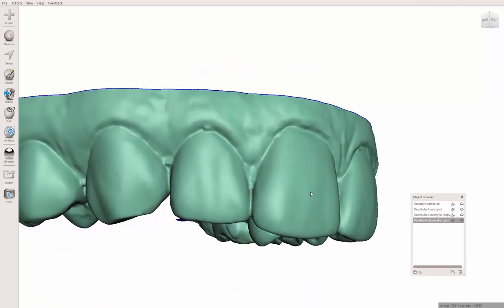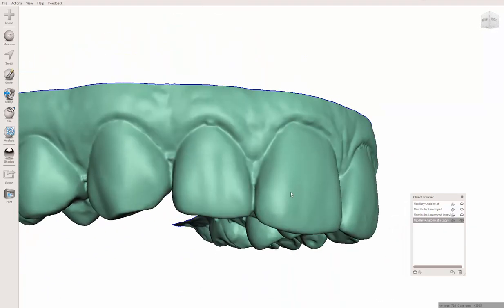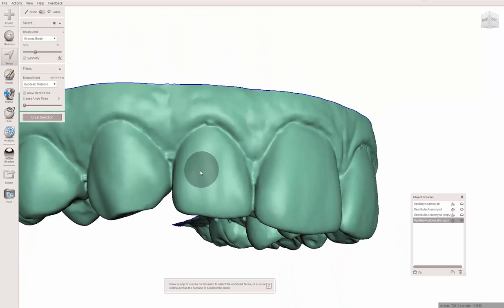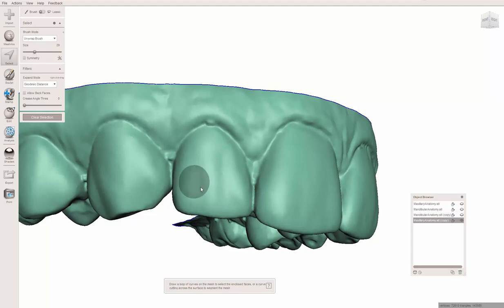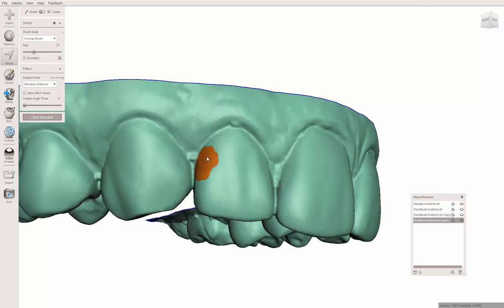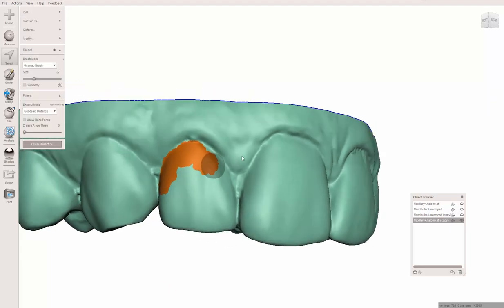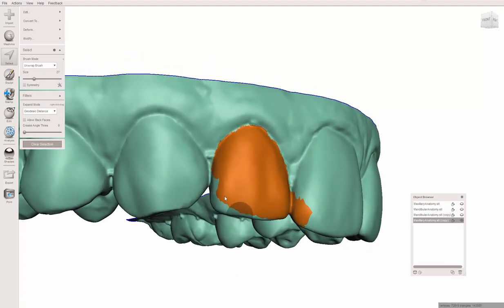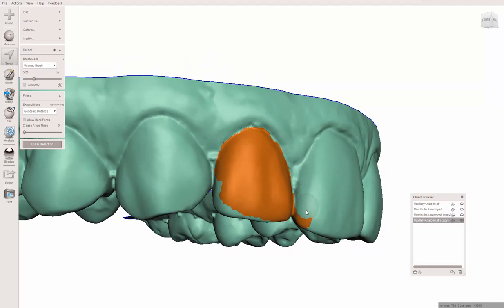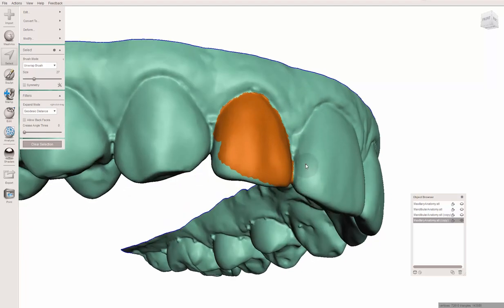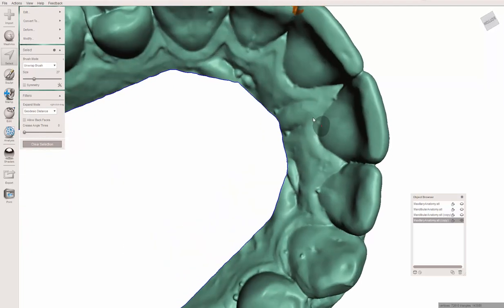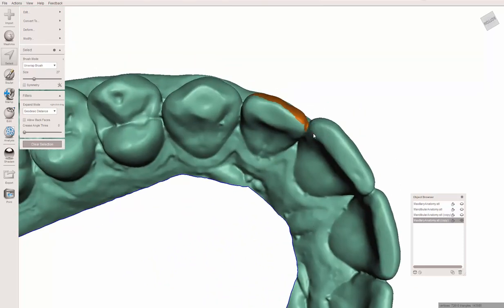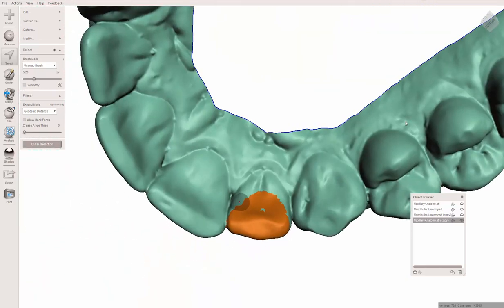First thing I'm going to do is get the teeth that I want separated. I'm going to hit the S button, or the select button, and I'm going to dial this down using the bracket buttons, or you can grab the slider and move it around. I like shortcuts on the keyboard. I'm just going to highlight the two. This does not have to be exact for this, we want to be pretty close.